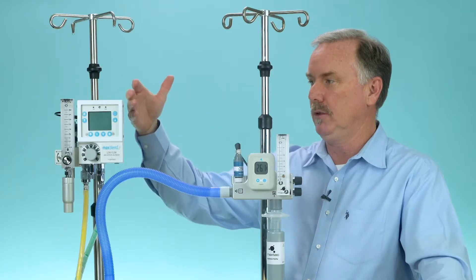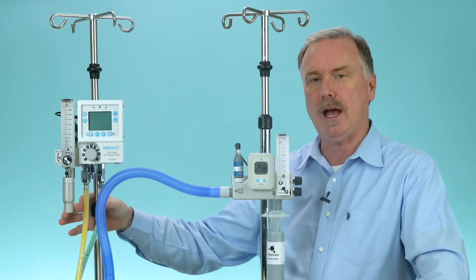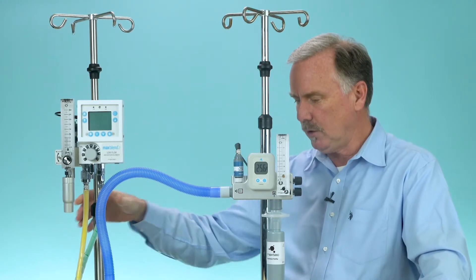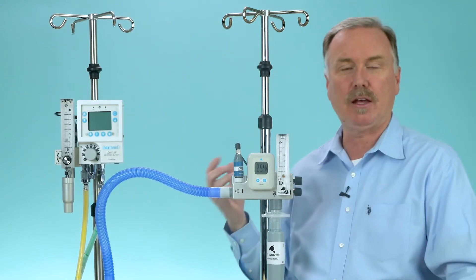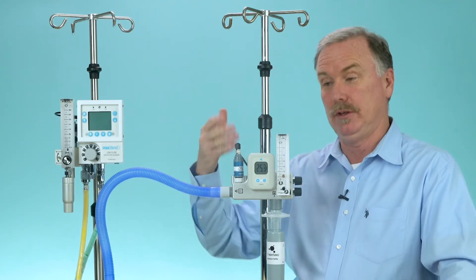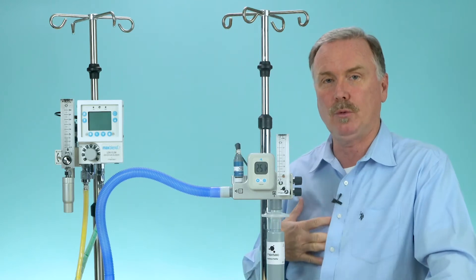The Max Blend 2, whether high flow or low flow, requires two gas sources. So if you're in an environment or a part of the hospital that only has one gas source, the Max Venturi is your choice, and it does perform very well.